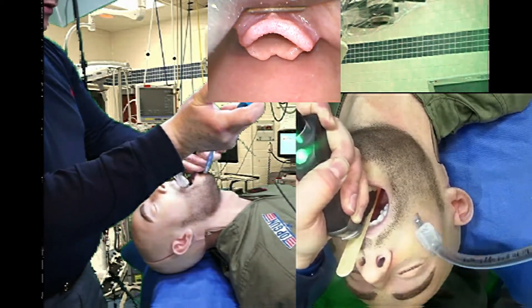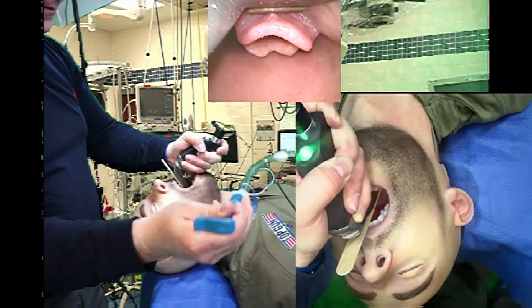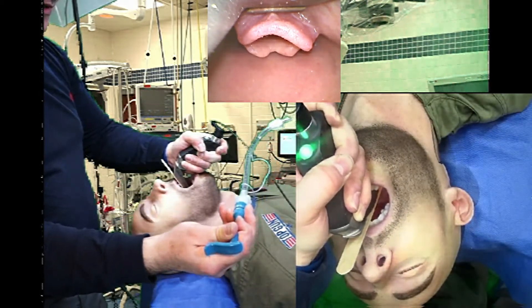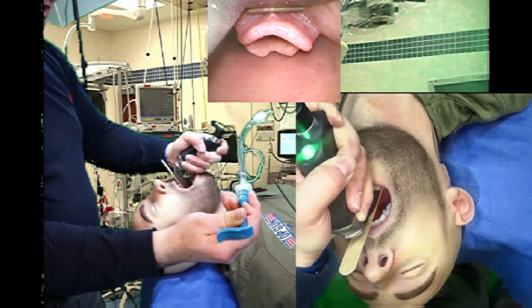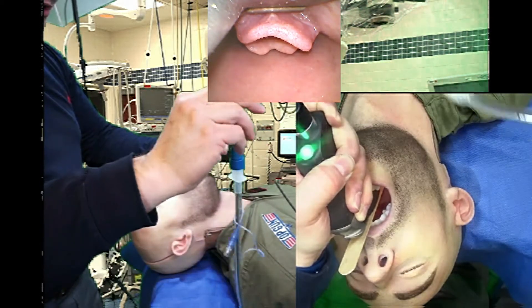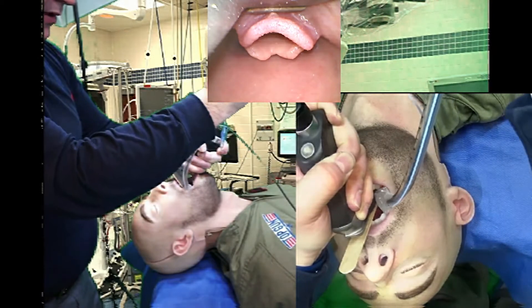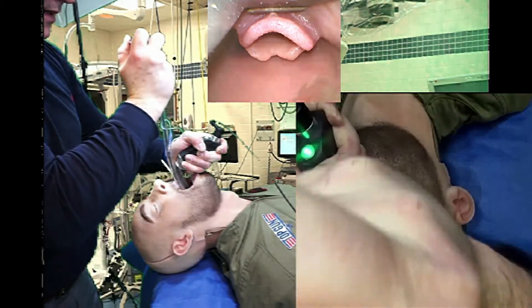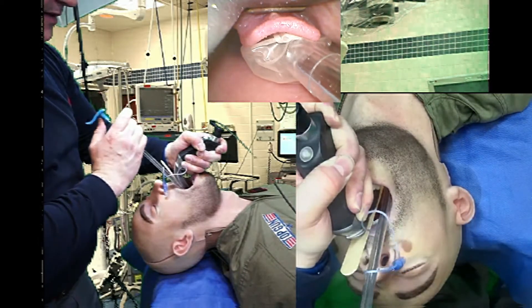What I'm going to do now is a tube delivery maneuver. I'm going to grasp the tracheal tube from the very top of the stylet. This is a stylet intended for a UE Medical video laryngoscope; it looks a little bit like a GlideScope stylet. If I hold it from the top, I can use my elbow to create that circular motion where the tube just easily comes around the base of the tongue.